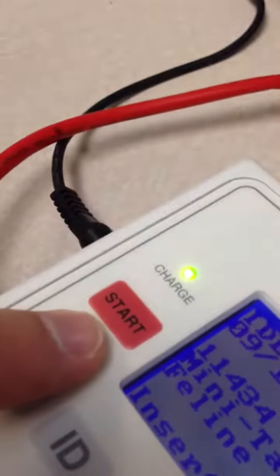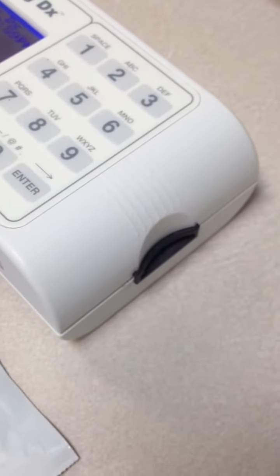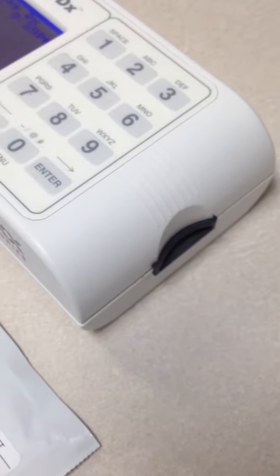When you add the sample to the well, you only want to add 2 to 2.5 drops of your sample, making just a small enough bubble like you would with a fecal for the sample, and then you'll press the start button. Once you press the start button, the sample will start to go into the machine, and it'll start running the sample for you.